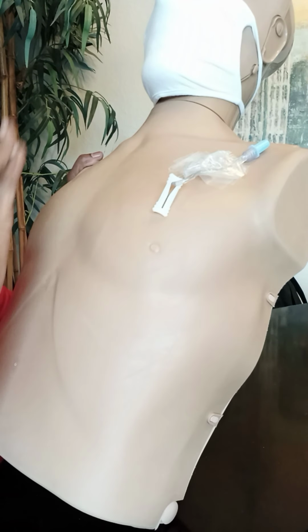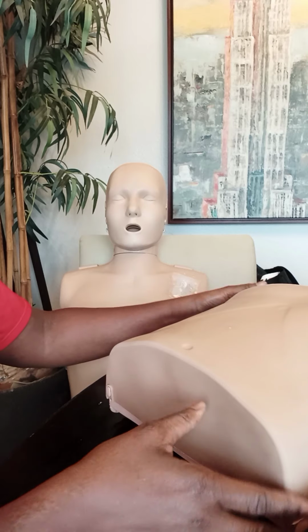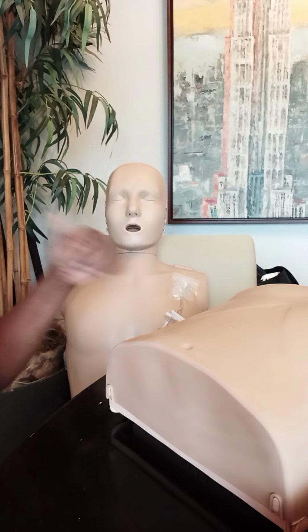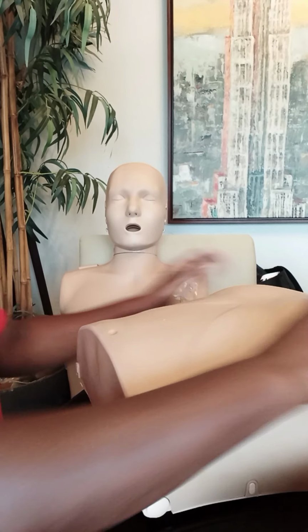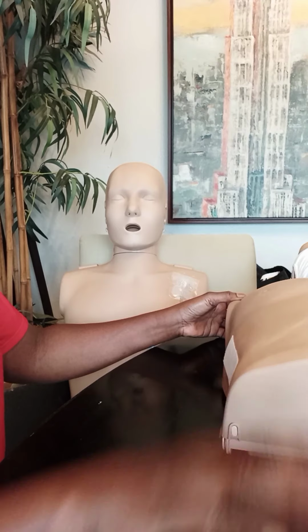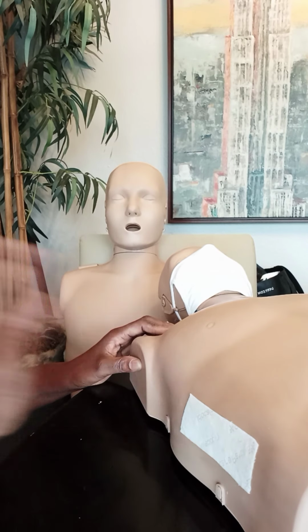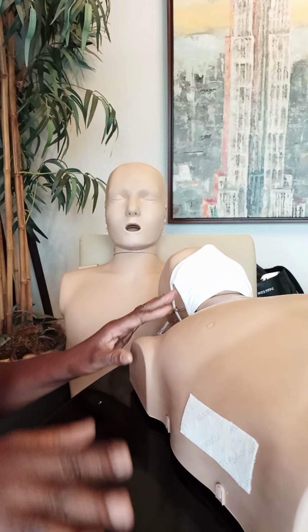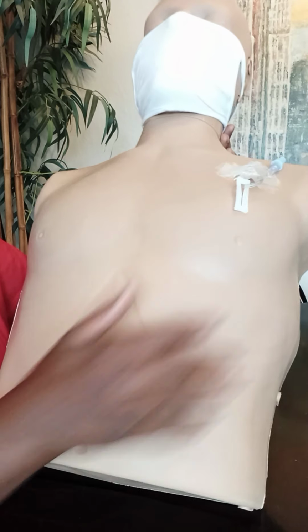So we have patients in the hospital that have ports, who have dialysis catheters. But we also have them walking around every single day amongst us out here in the public places, because people go for chemo and they go for dialysis. Now, on Jerry, we also have a medicine patch, a pain medication patch. This is Jerry's left side. I'm not sure if this is inverted, but this is his left side, and this is his right side.